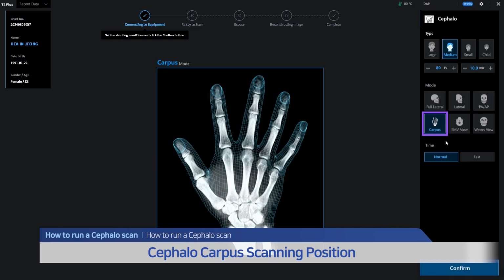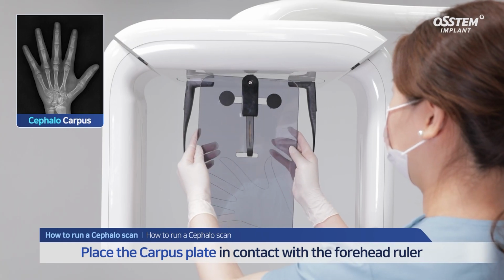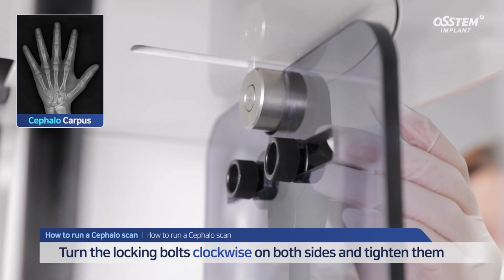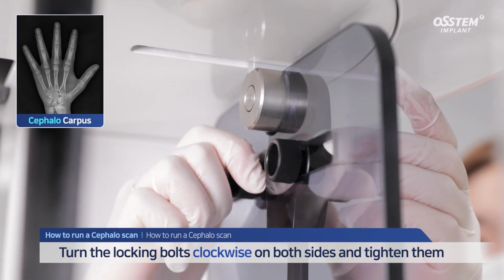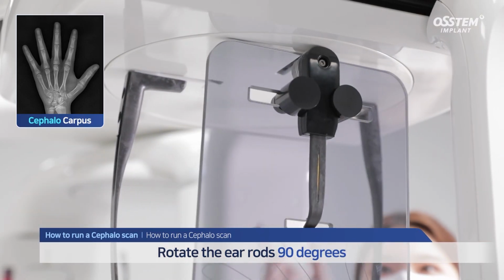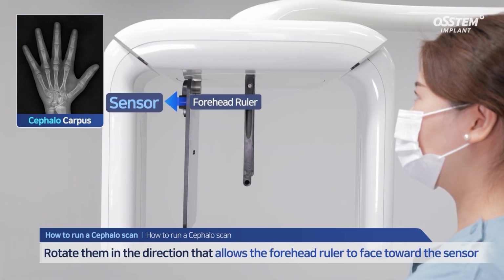Let's take a look at the cephalo carpus scanning position. Place the carpus plate in contact with the forehead ruler. Turn the locking bolts clockwise on both sides and tighten them. Hold the ear rods and rotate them 90 degrees. Rotate them in the direction that allows the forehead ruler to face toward the sensor.